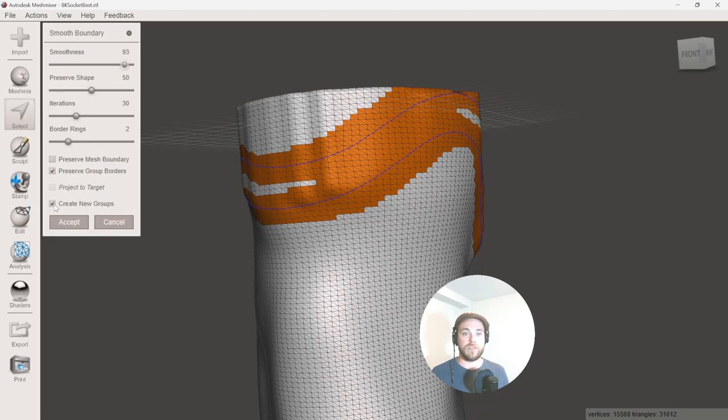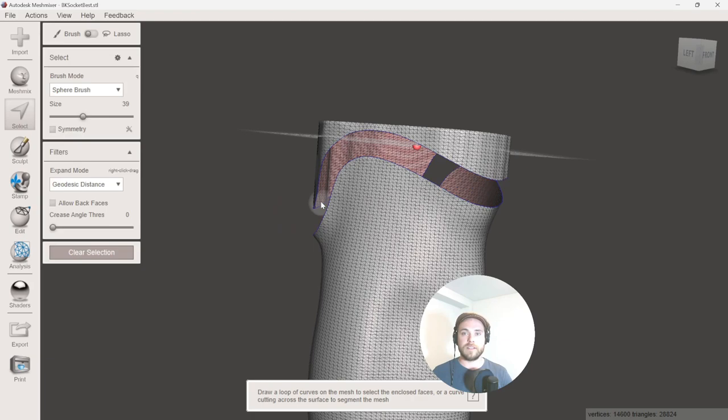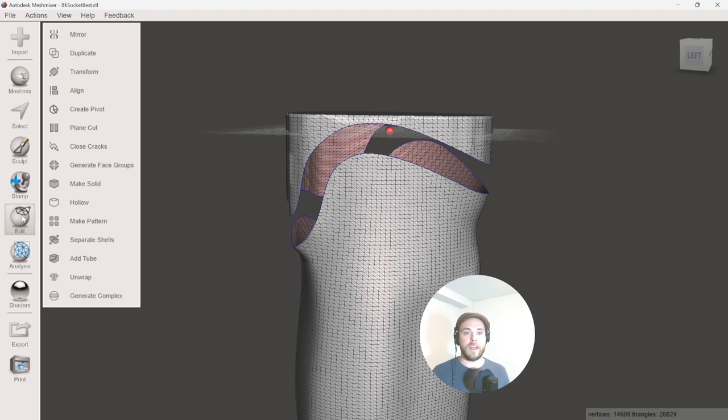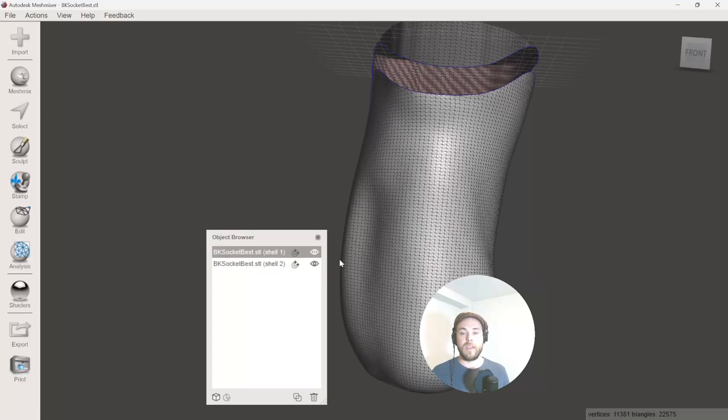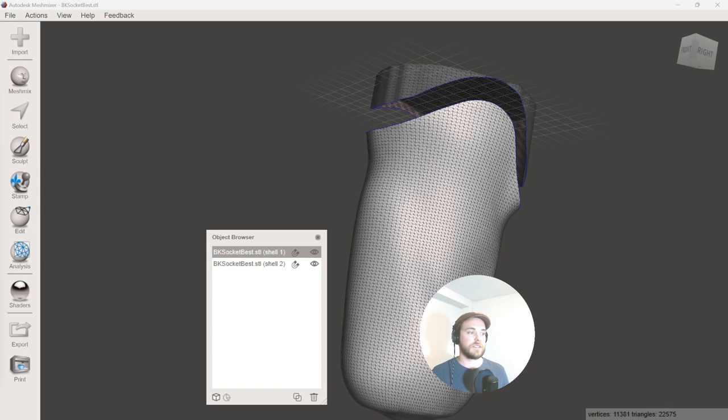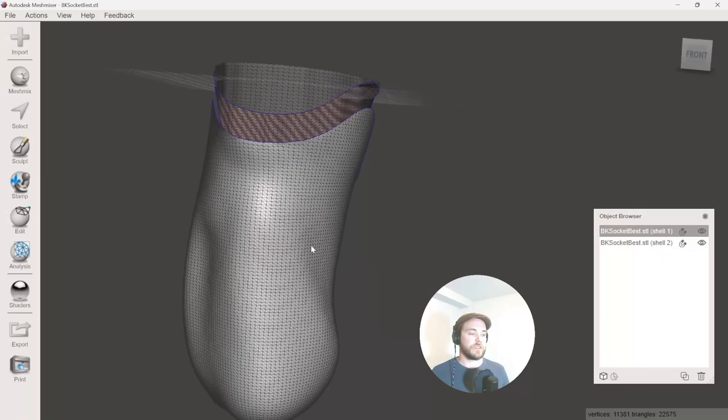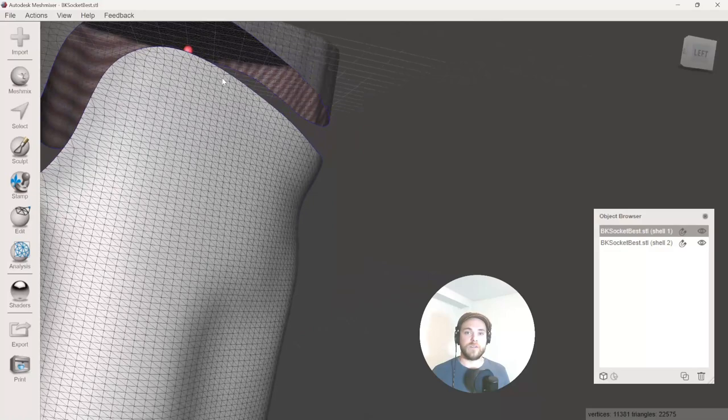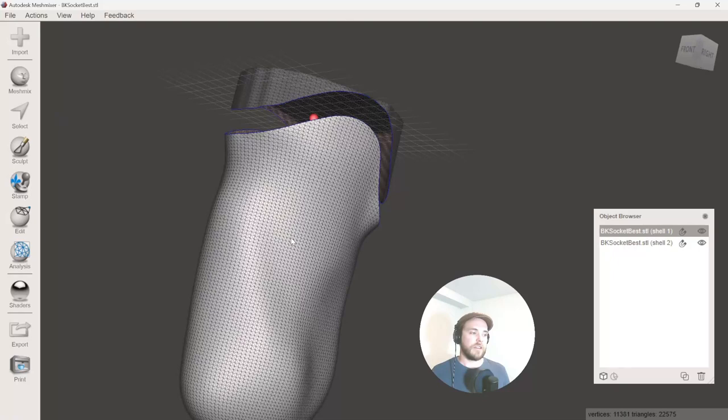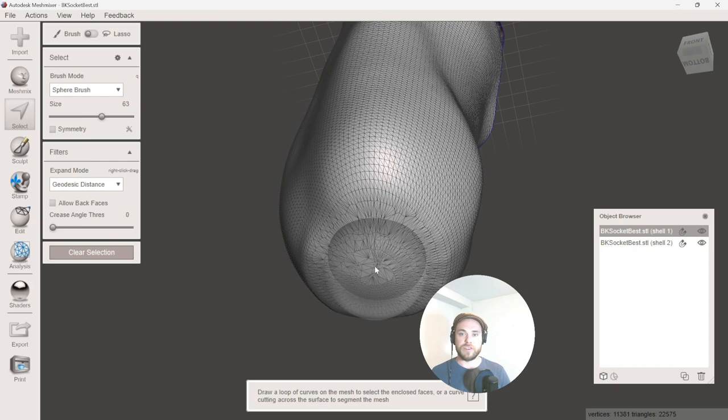There's that new group. We can immediately press delete to create this division. And now I believe if we go edit, we can separate the shells and have two different shells here for our use. I'm going to select the one I want to keep and I'm ready to go. So we're going to export this as whatever you want to export it as. I'm going to put this on the desktop and I'm going to hit save and that is it. So whether you use mesh mixer to do this or not is up to you. The main thing to remember is that you want a nice faired open edged trim line at the top for this command to work.